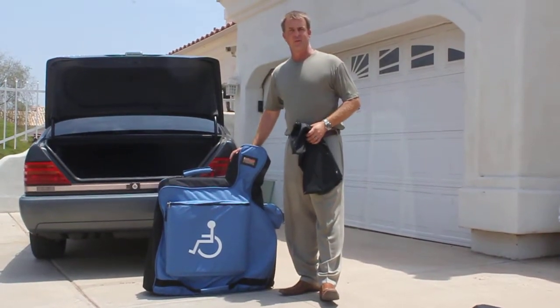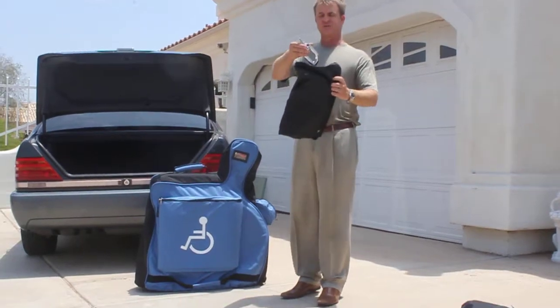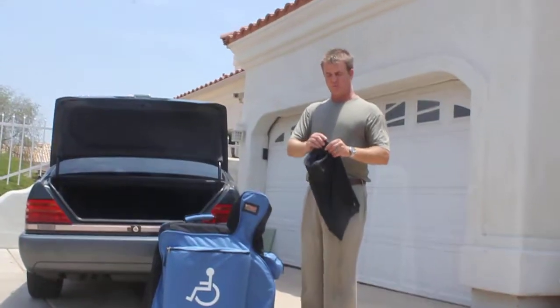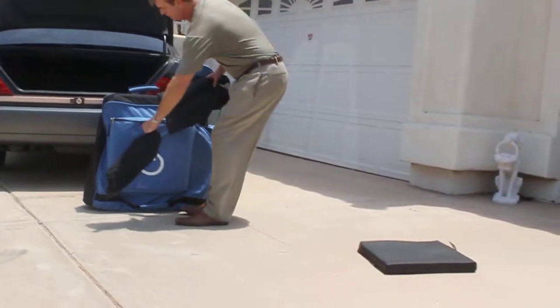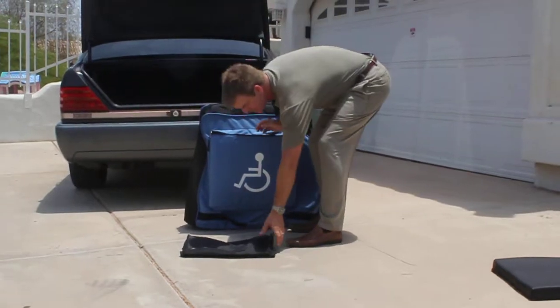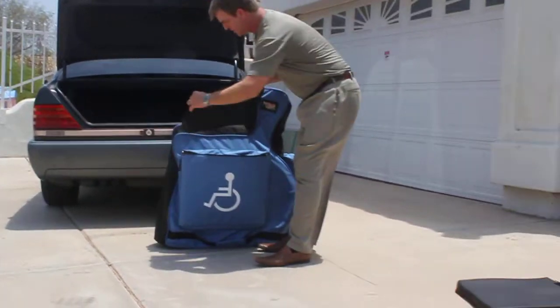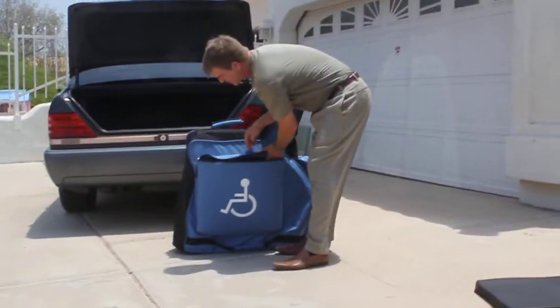That seems like this would be a whole lot better product. Some of the features: these are your leg risers, and they have their own pouches in them. These are the feet that go along with the wheelchair carrying case — they go right here in our padded pocket with the universal wheelchair symbol on it. The second one has velcro on the top so that it keeps it nice and high and they don't slam on top of each other.